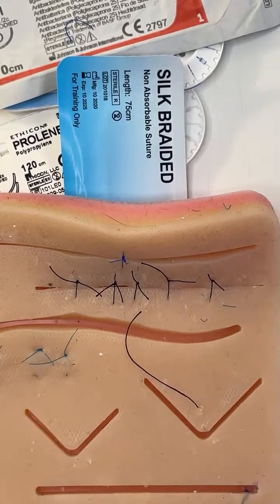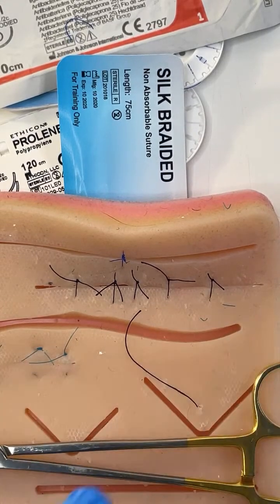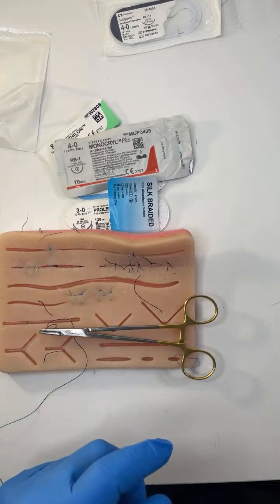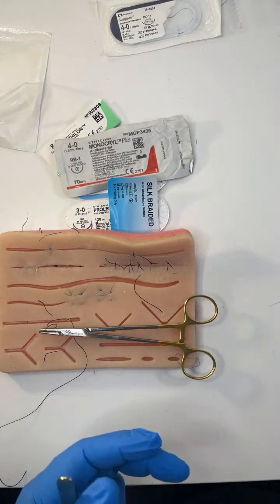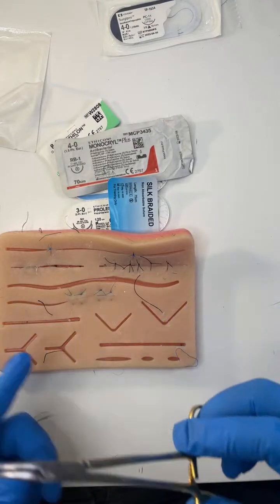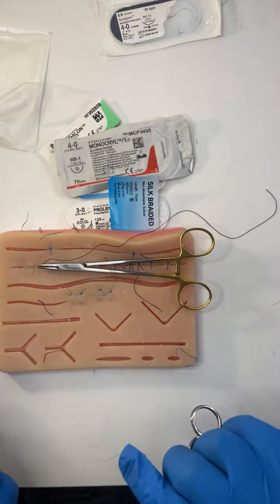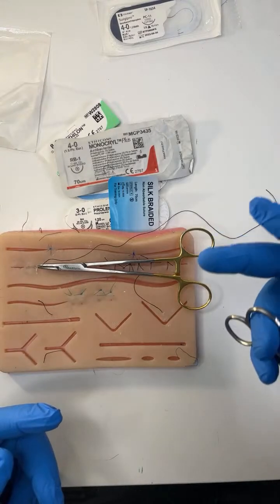So that was a little insight into how I use suturing to deal with complex wounds. We've talked about classifying sutures: monofilament, braided, dissolvable, non-dissolvable; the suture strength required to break it — the number, 3-0, 4-0, 8-0; the needle type — round-bodied, cutting, taper point, reverse cutting; and some skills you can use to close a complex wound under tension. In the members-only live area, I'm going to show you the deep dermal, the locking mattress, the traditional mattress, and the half-buried suture — building on what we've covered here about when to use braided versus monofilament.